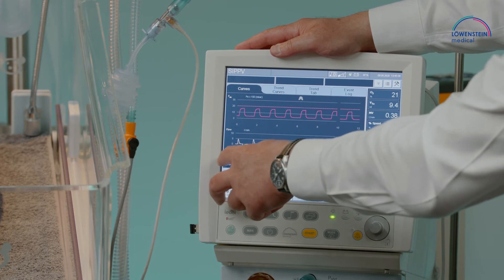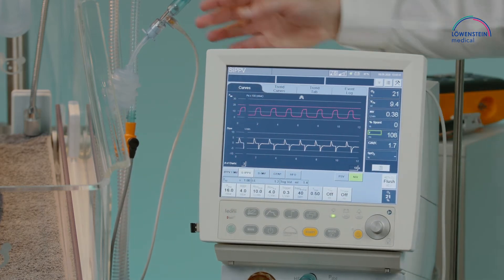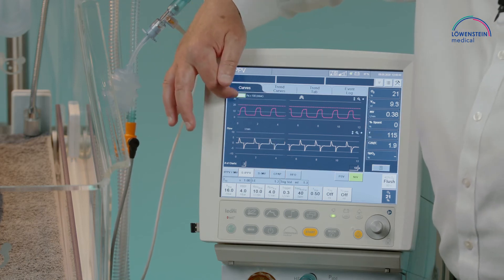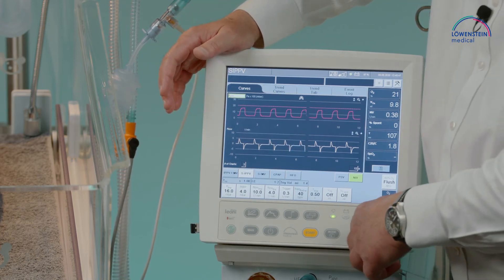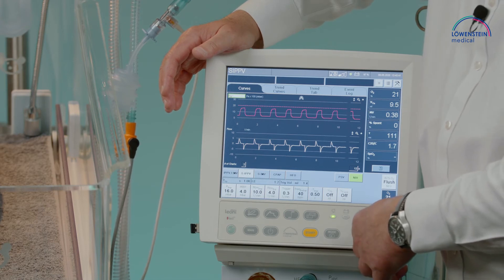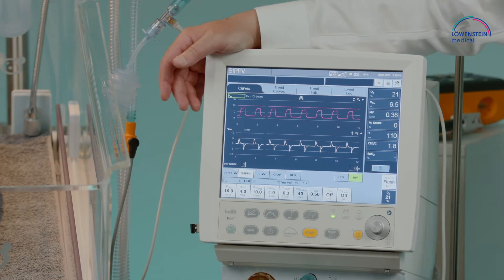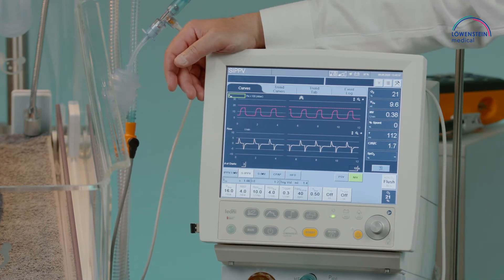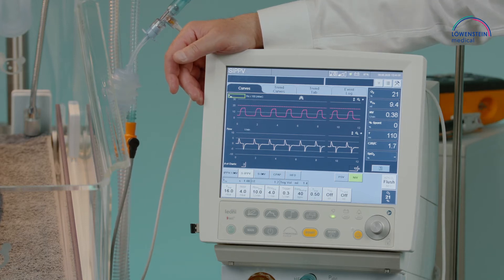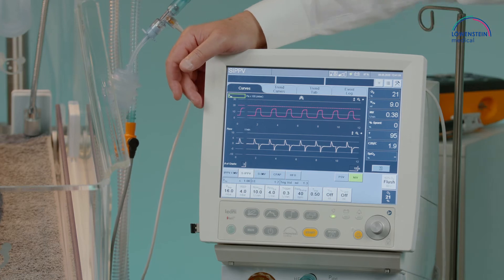In the graphics section we have the pressure graph, where we can also show flow, volume, or if present, the saturation signal from the Masimo option — giving you a direct graph for saturation as well.